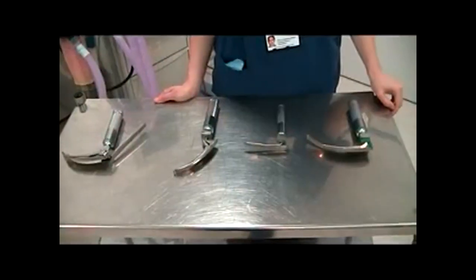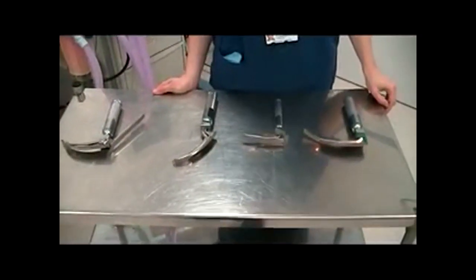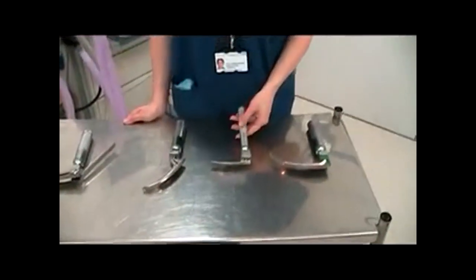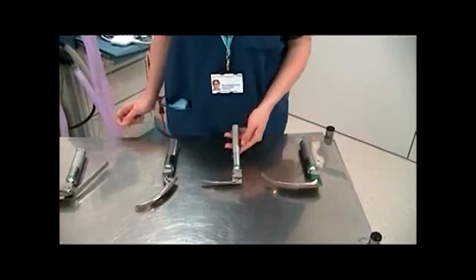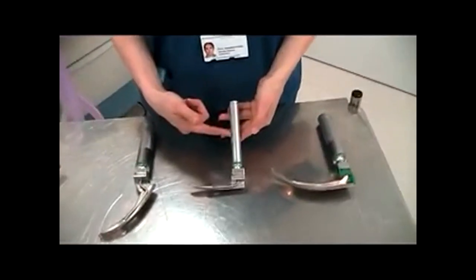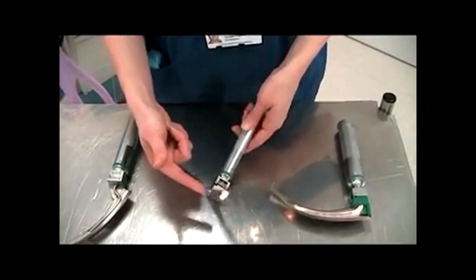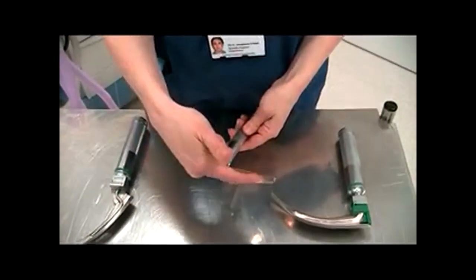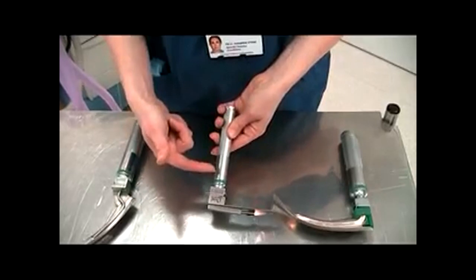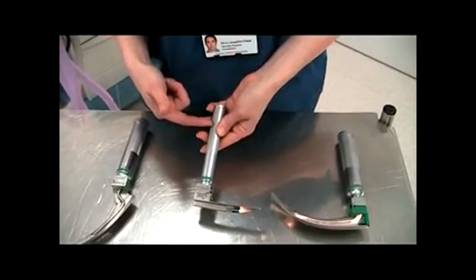What are the different parts of the laryngoscope? The standard parts of the laryngoscope are the handle, the blade, the fibre optic bundle and light source, and the battery which is housed inside the handle.